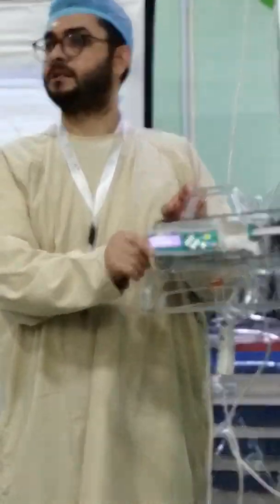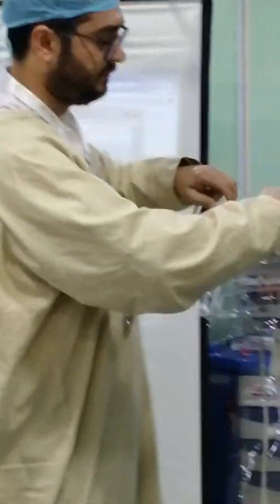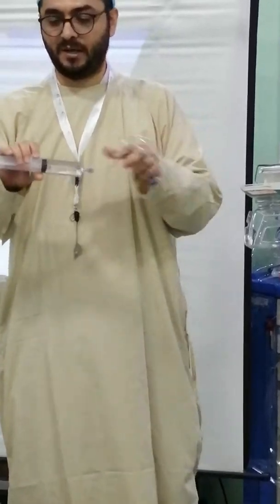So you put the syringe in — this is a manual. You will just open it like this, then get your syringe with your drug, whatever it is, and put it to the pump. This is a very important point I am coming to. I just want to show you the technique of loading the syringe into the pump. This pump can take syringes from 2 ml up to 60 ml, and it can give you accurate dosing even with a 2 ml syringe.